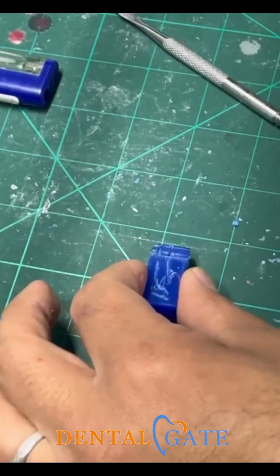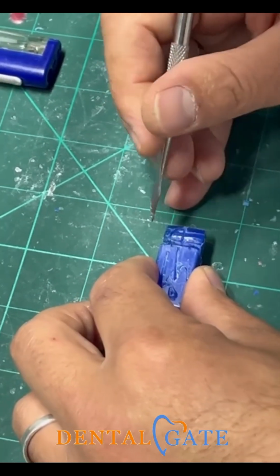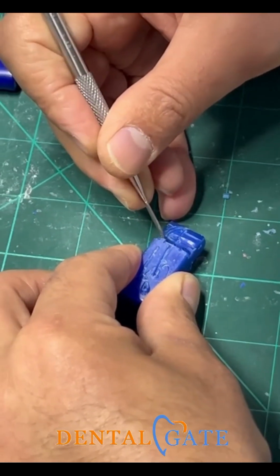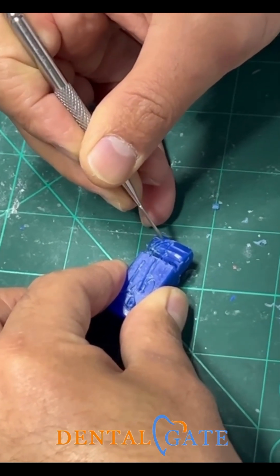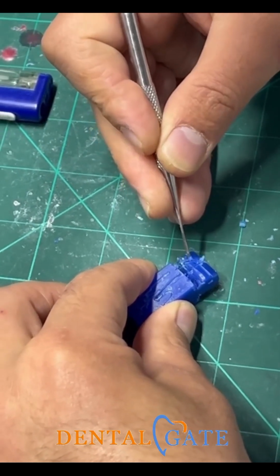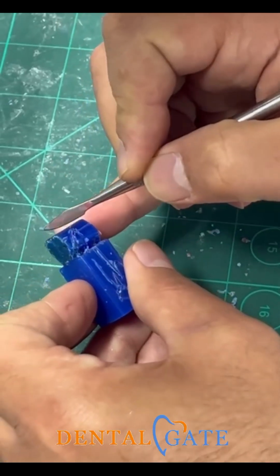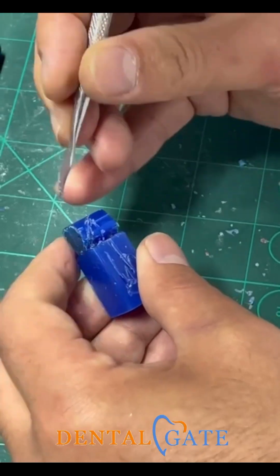So now, what I need now, this is my curve, okay? This is the 5 millimeter, the maximum convexity will be here. On the middle third, I will start to make the curve here. So this is the 5, this is the 6, and this is the maximum convexity here. This material, I don't need it. It will be cut from the labial aspect, not here, okay? I will cut it from here, to produce the curvature of the lateral incisor.